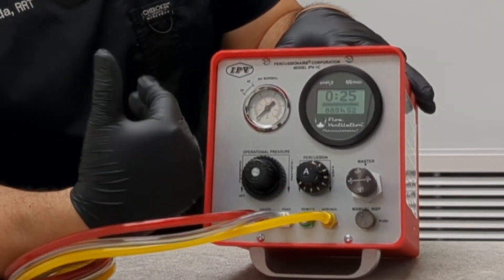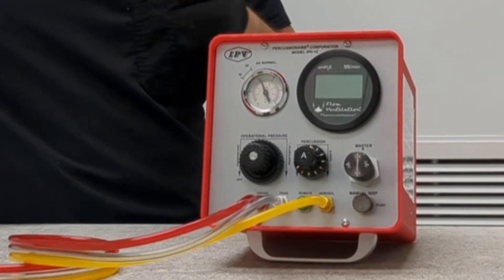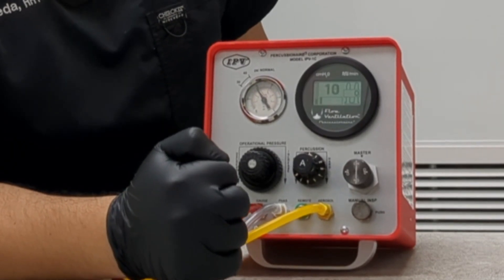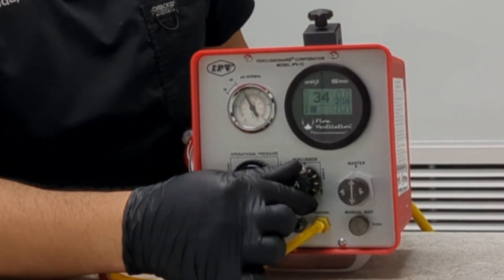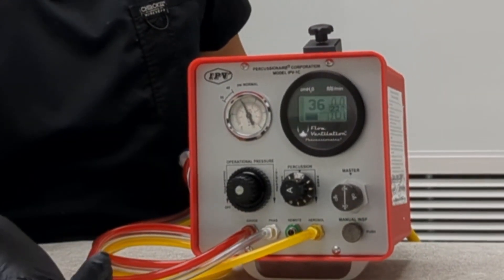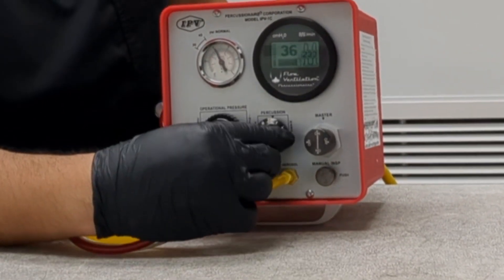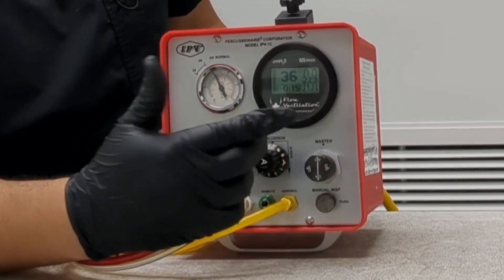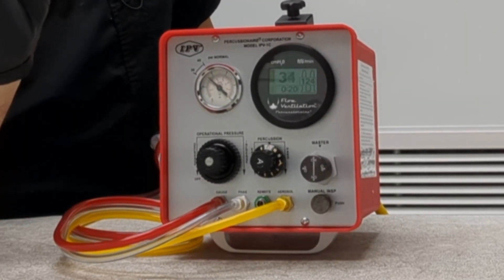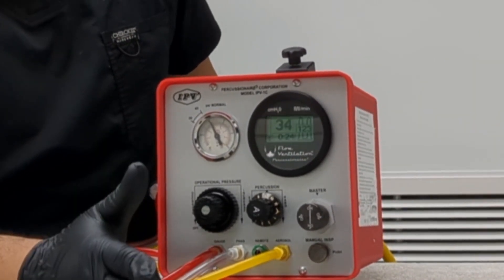If you wanted to break this down into two or three minute increments, you still follow the same thing. Starting at the 12 o'clock position, we speed it up for two minutes, then we slow it down to the 12 o'clock position or slower depending on how well our patient tolerates it. It's fine to use the full spectrum or a narrower window — it's really based off how comfortable the patient is and how responsive they are to the therapy.